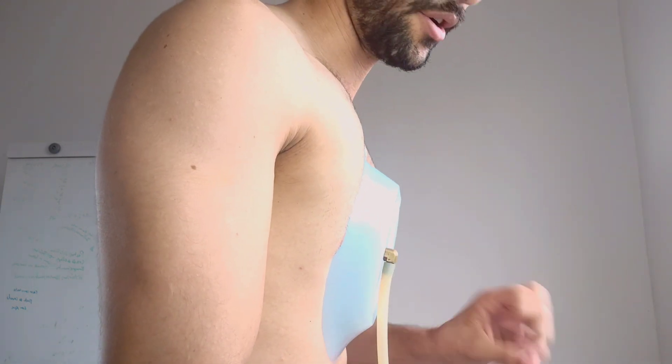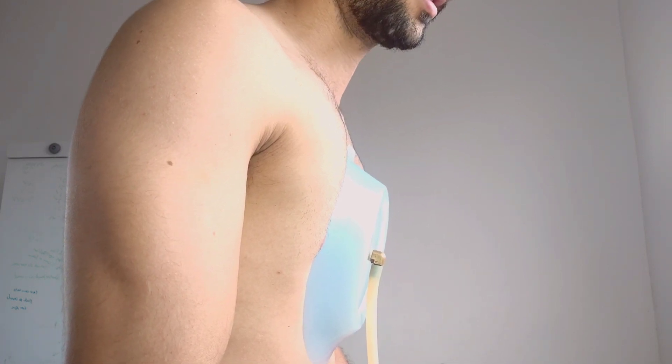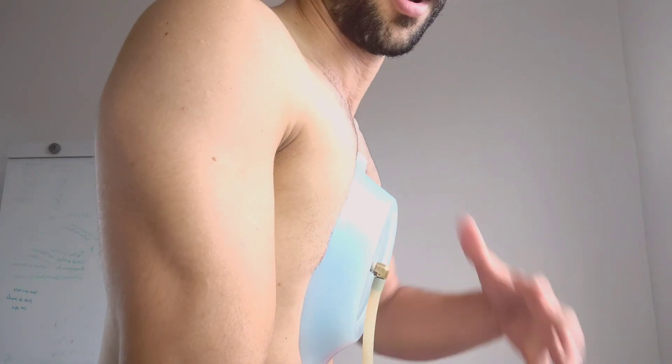What you want to do is stretch — keep straight and bend as much as possible with the air out of your lungs, and you're going to feel everything here. There are a couple of variations you can try: move yourself using this logic of taking the breath out and bending your body, stretching like a cat.